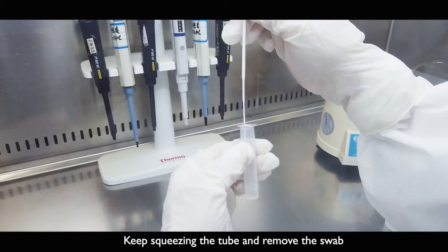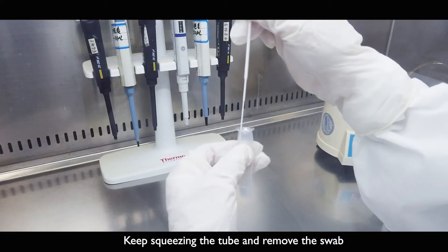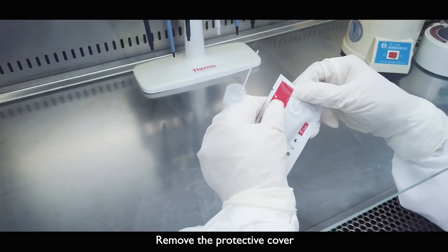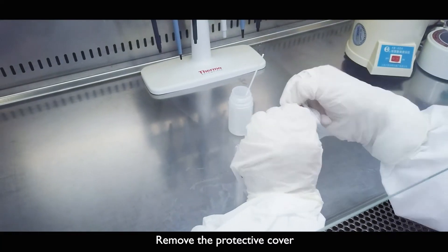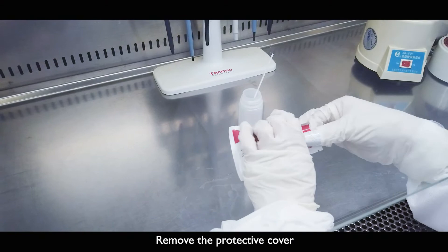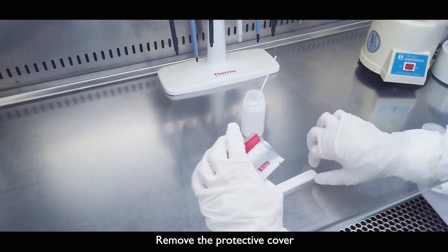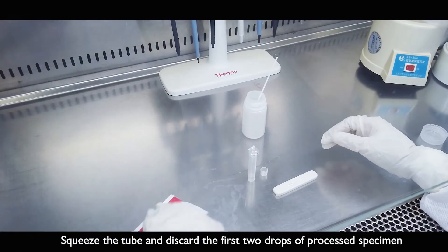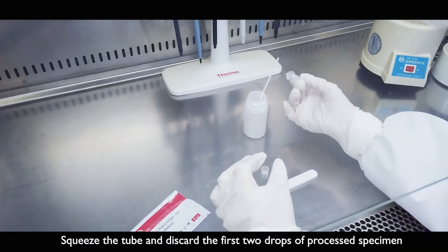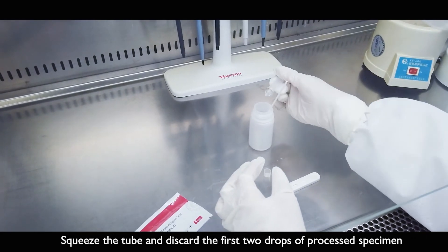Keep squeezing the tube and remove the swab. Remove the protective cover. Squeeze the tube and discard the first 2 drops of processed specimen.